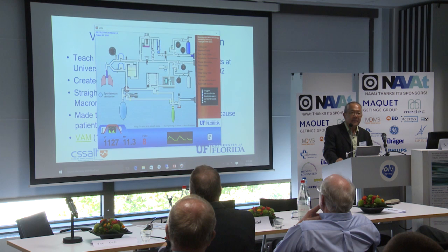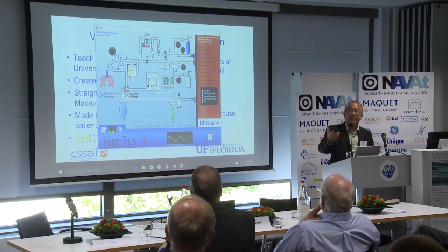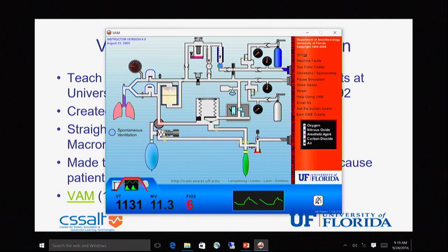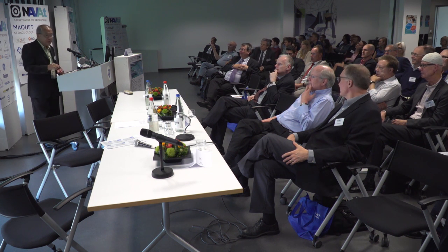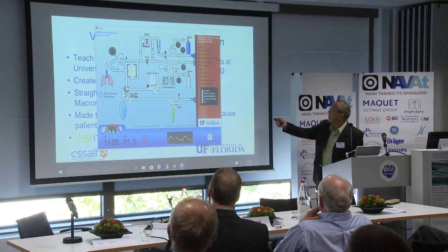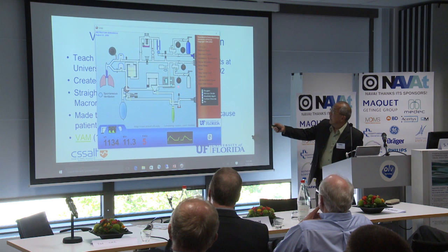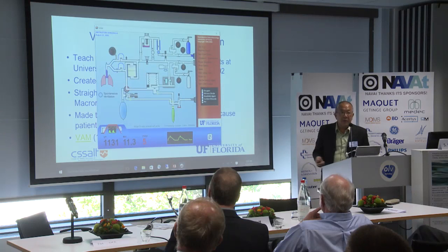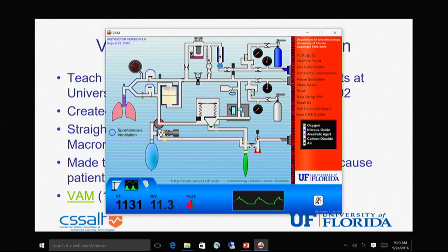We have an issue — we have an inspired oxygen of 8. I showed you earlier my hypoxic guard was working: when I turned up my nitrous, my oxygen followed. The oxygen pressure is fine because if you look here the needle is up, but the cylinder is at zero — the pressure in the pipeline is good.